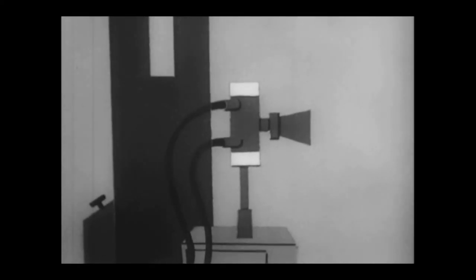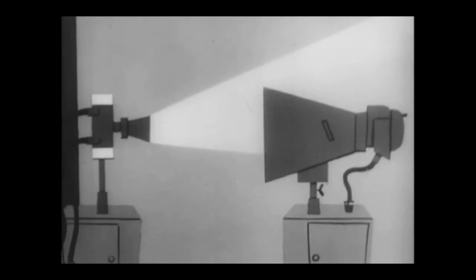Above all, don't be fooled by the fact that your PF machine uses a ray-proof x-ray tube. It is true that proper coning and proper alignment of the tube will keep the primary x-ray beam from spilling off the PF screen. So if you're operating the equipment properly, you don't have to worry much about exposure to primary radiation. But you do have to protect yourself against secondary radiation.